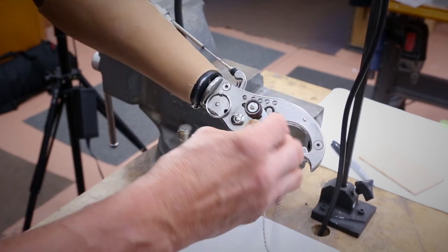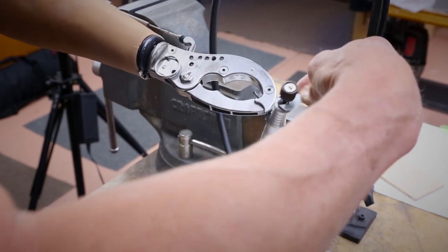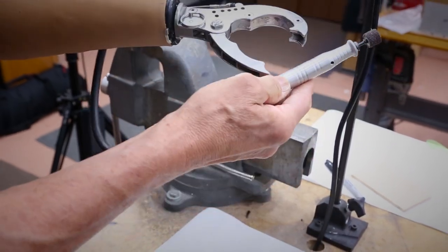Being able to pull out this little tool and replace it with a sander with a larger diameter. I've got control over the tool — I have enough ability to grasp on and create tension so that I can tighten that chuck firmly while I'm holding on. So now I've got a functional tool.